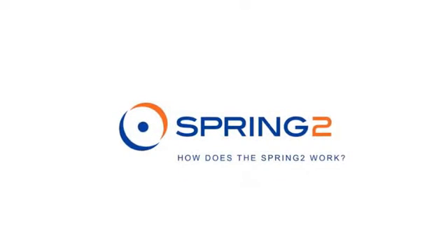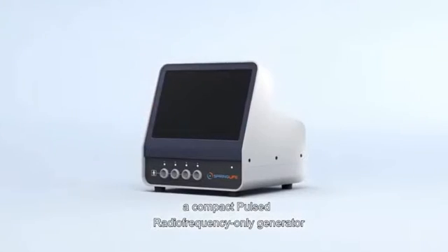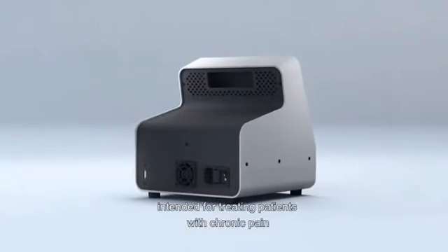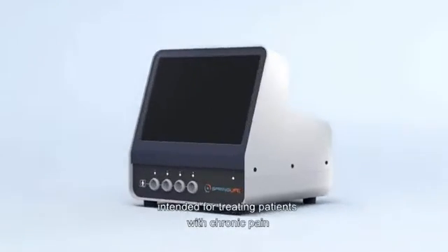The Spring 2, a compact pulsed radio frequency only generator intended for treating patients with chronic pain.